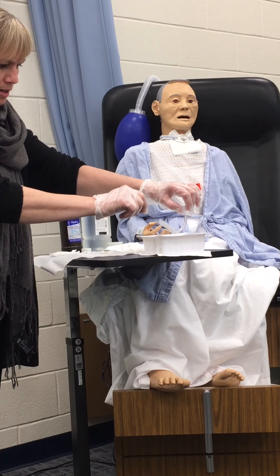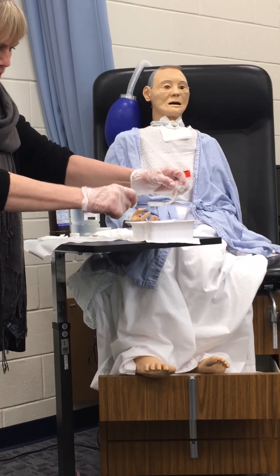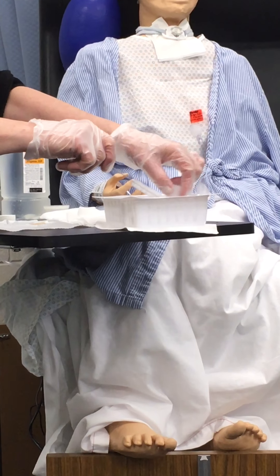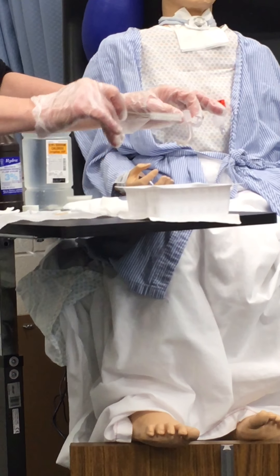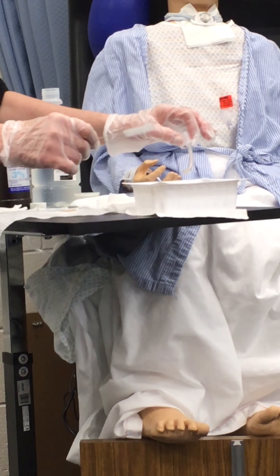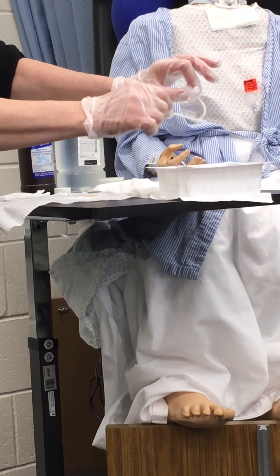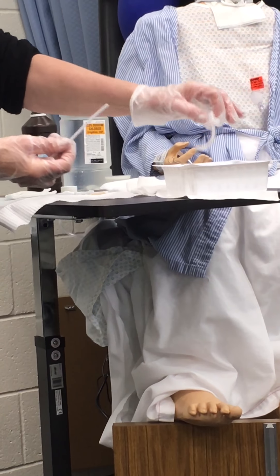Now I'm going to sterile — sterile. This is my scrubber. I put my peroxide in the smallest container for scrubbing. I just hold it, and then it's a matter of going in and around, scrubbing. Even though this is big, it does fit in here. Scrub. With real peroxide, this will foam — you won't be able to see because it's all contaminated, it reacts, and it'll be all foamy. So that's a challenge. You want to make sure this looks clean. Now I'm going to rinse in here. If I had areas I needed to clean, I could do that with a smaller appliance.